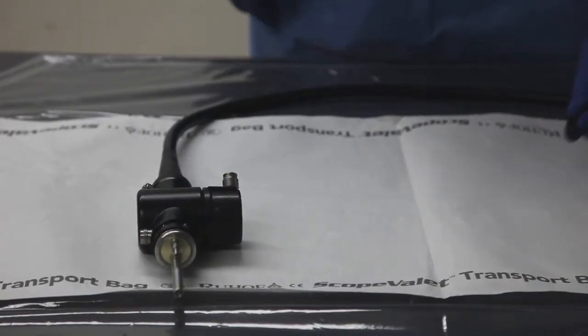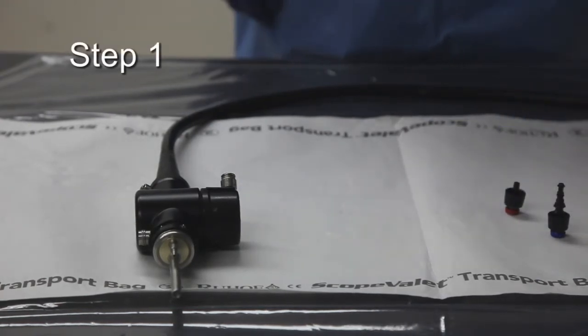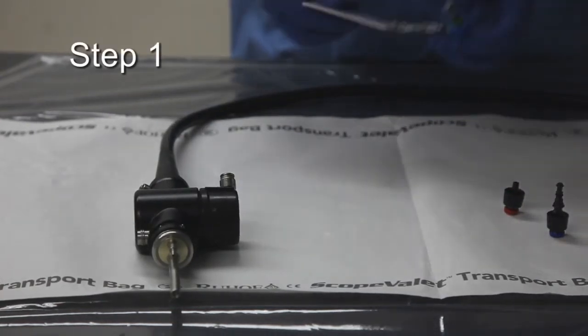Now, let's take a look at how to use ValveSafe. Remove the valves from the endoscope and manually clean them according to the manufacturer's instructions.